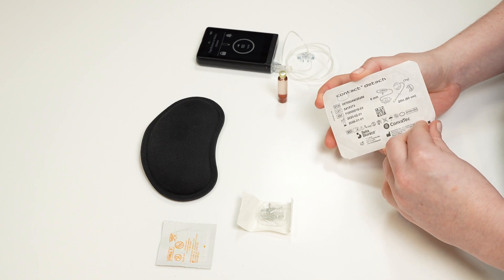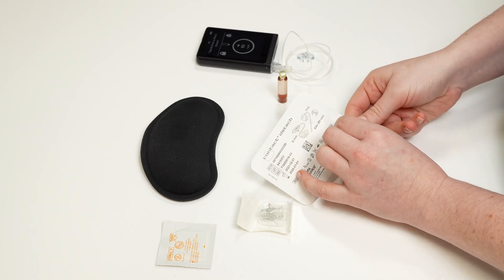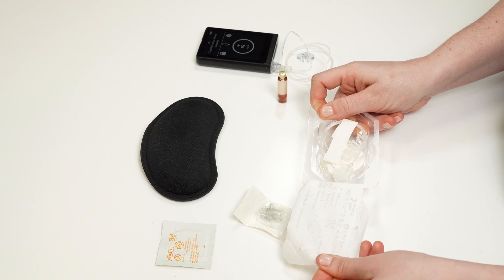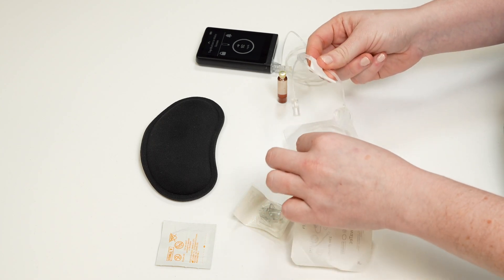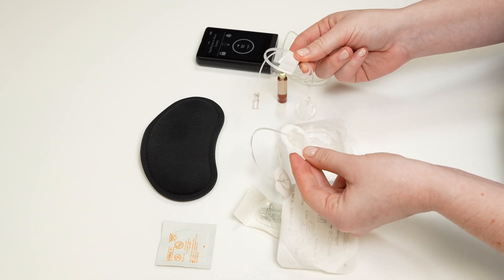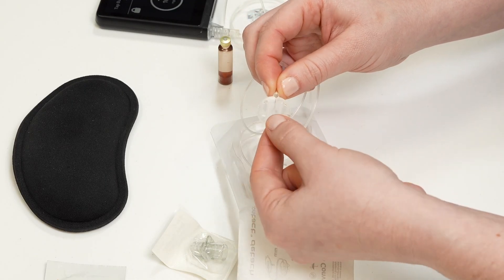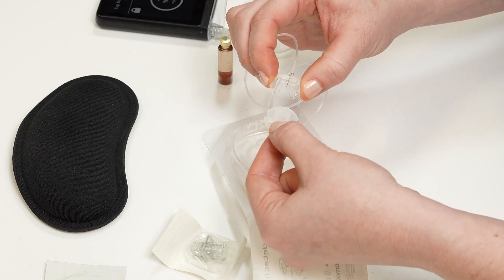The first step is to prepare your tubing. Open your infusion set package by pulling on the white tab in the corner. Your contact detach infusion set comes in two pieces — one has long tubing and one has short tubing. You need to connect these two pieces. First, locate the end of the long tubing that has a circular plastic piece on it. Gently squeeze the sides of the plastic piece and pull it straight to remove the cover. Discard the cover.